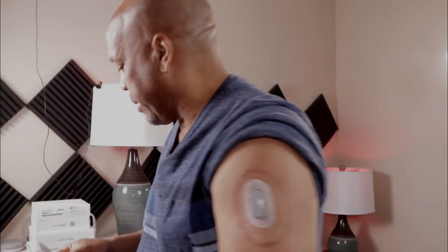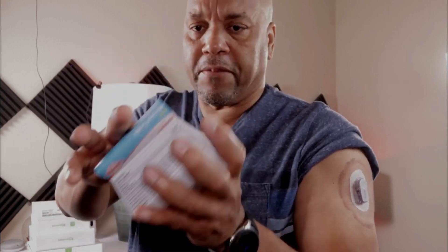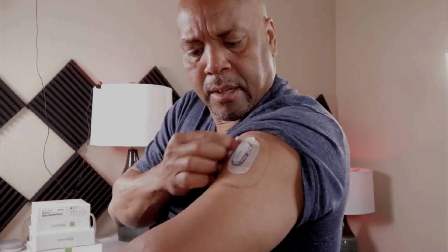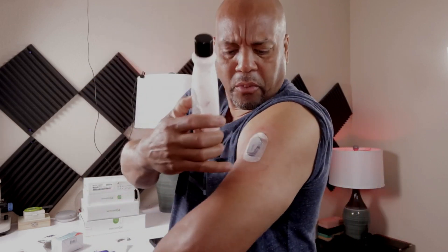That's one of the reasons I don't really recommend this type. Always make sure you get your swab — I always have backup boxes of swabs. You can get them from the pharmacy brand or Amazon and clean this out. I have to use nail polish remover to remove the ink pigment.